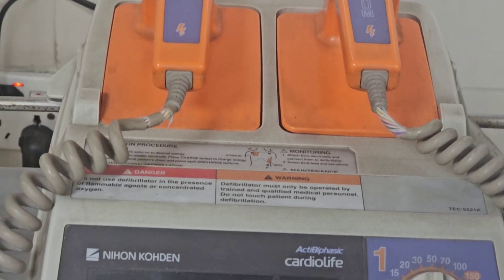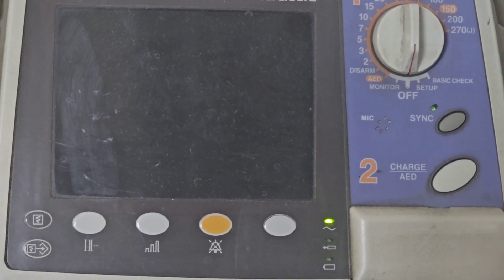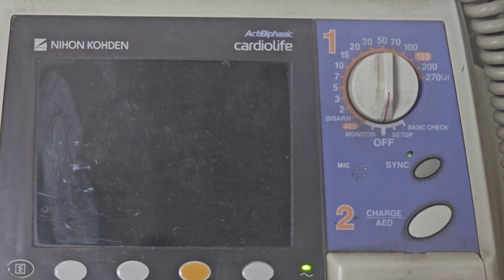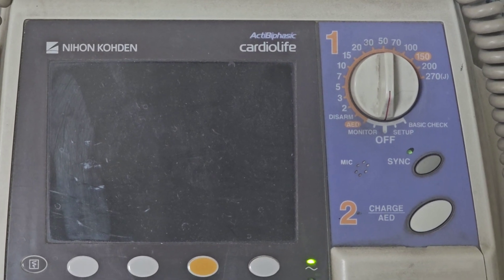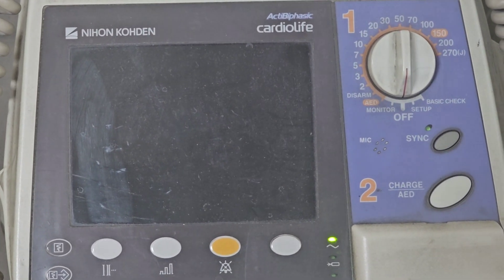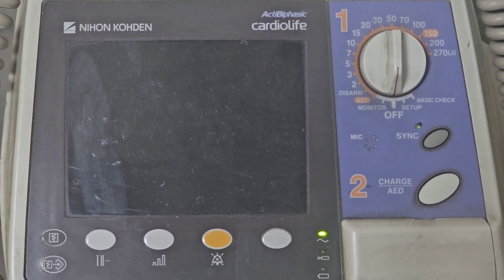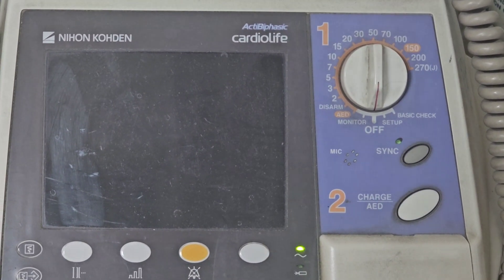There are some important issues — what are the indications of this machine? There are two important indications for using this machine. Simply put, we use it for cardiac arrest patients when there is a shockable rhythm, and we can also use the defibrillator machine as direct electric cardioversion in the cardiology setting when there is narrow complex or wide complex tachycardia. For both of these, the energy requirement and the pattern of use slightly differ.